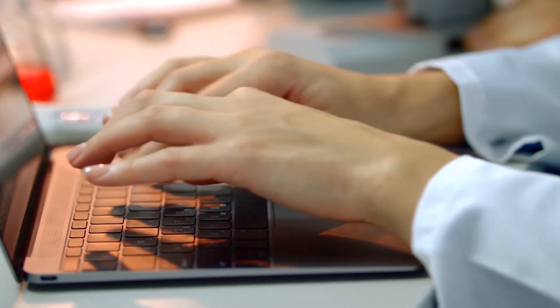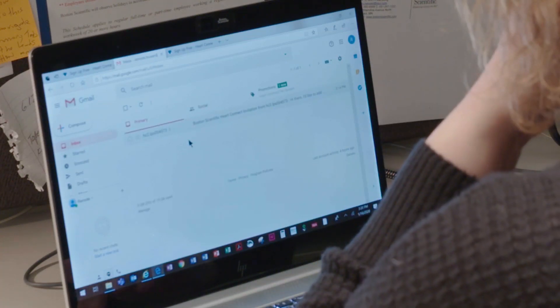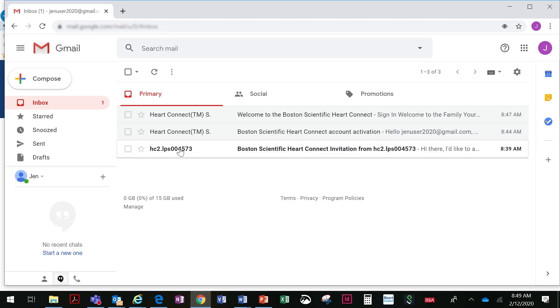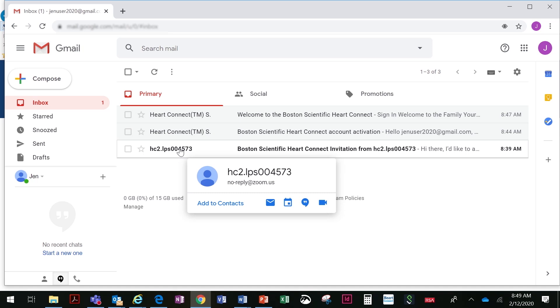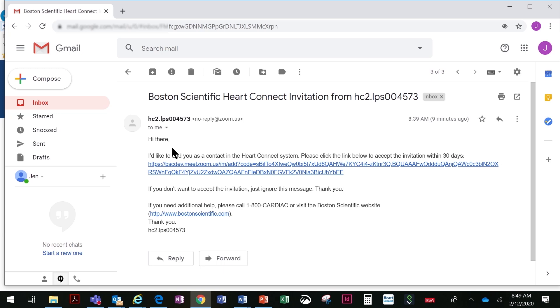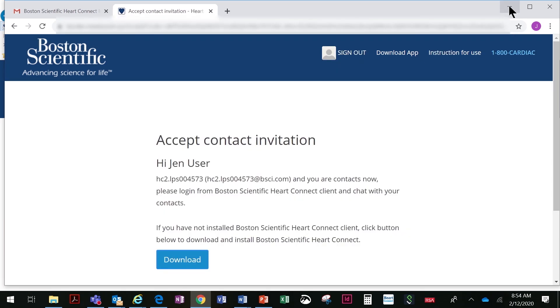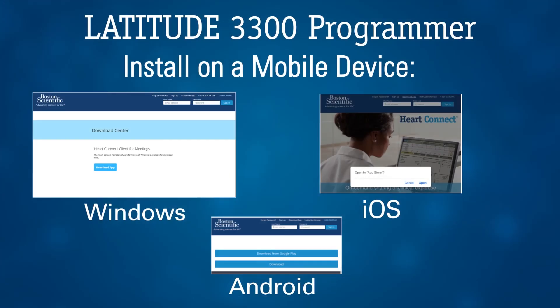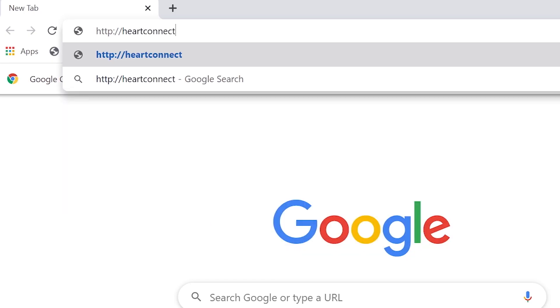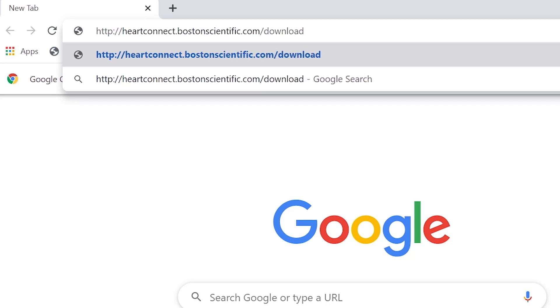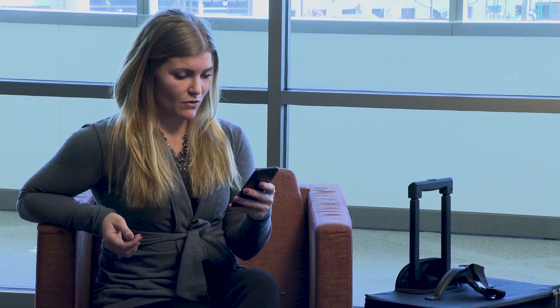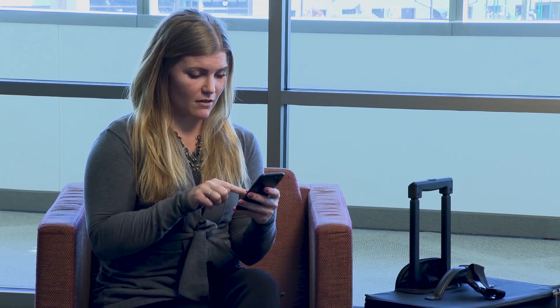A local user using the HeartConnect system can add remote users to a list of contacts for the purpose of connecting with remote users in online meetings. When a remote user is invited, an email is sent requesting acceptance of the invitation. To accept, select the link provided in the email message, which will open a webpage for the HeartConnect system. Log in using the user account created, and an indication will be given that the invitation was accepted. Remote users will also need to install the HeartConnect system's software. To install on a mobile device, navigate to the appropriate App Store and locate HeartConnect. For Microsoft Windows, download through heartconnect.bostonscientific.com/download. To receive online meeting calls, ensure you are logged in to the HeartConnect application.